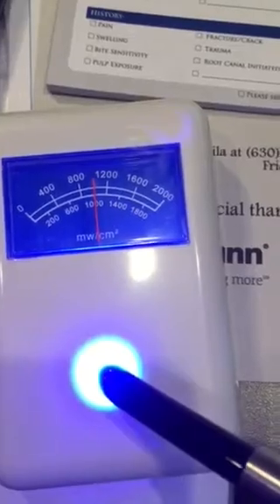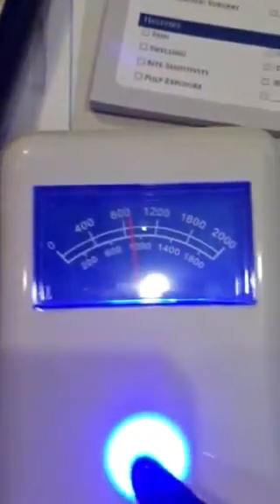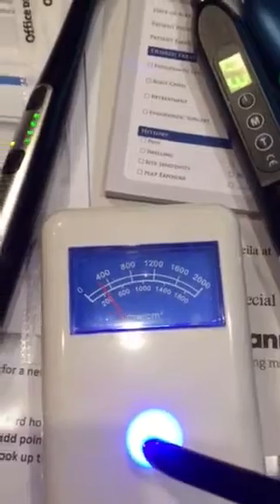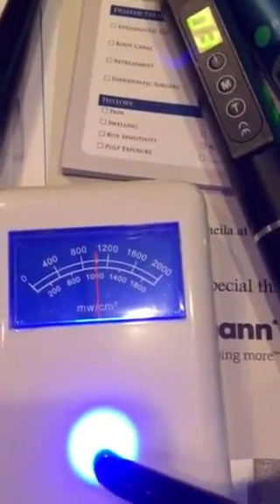I'll run through all the Chinese ones. This one has shotgun mode and others I haven't tried yet — that one's right at a thousand. This one is the CR CV 215 — it's a little over 800, about 800. The next one is a little under 800. Then this one — let me get it in the right mode — that one is a thousand, and this one is unmarked, I don't even know what it is.